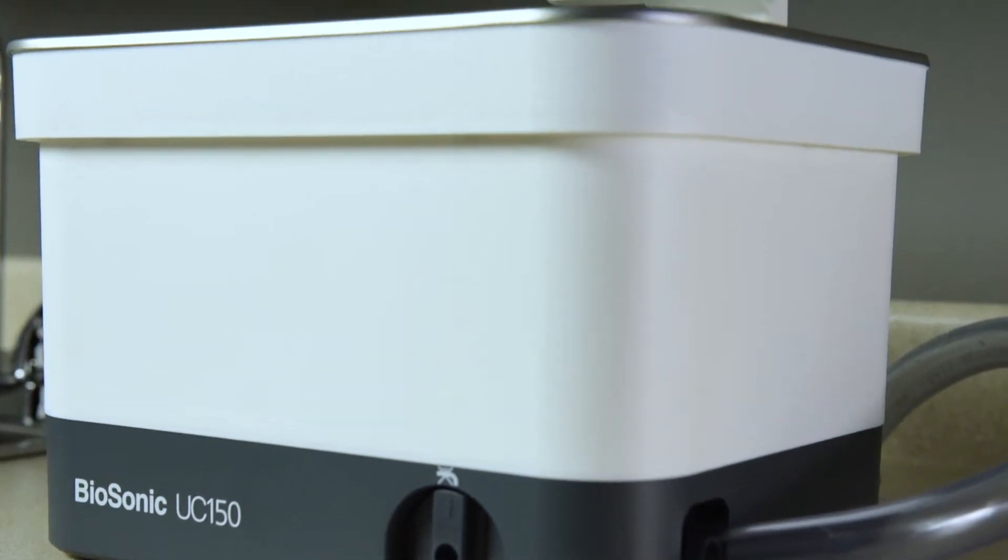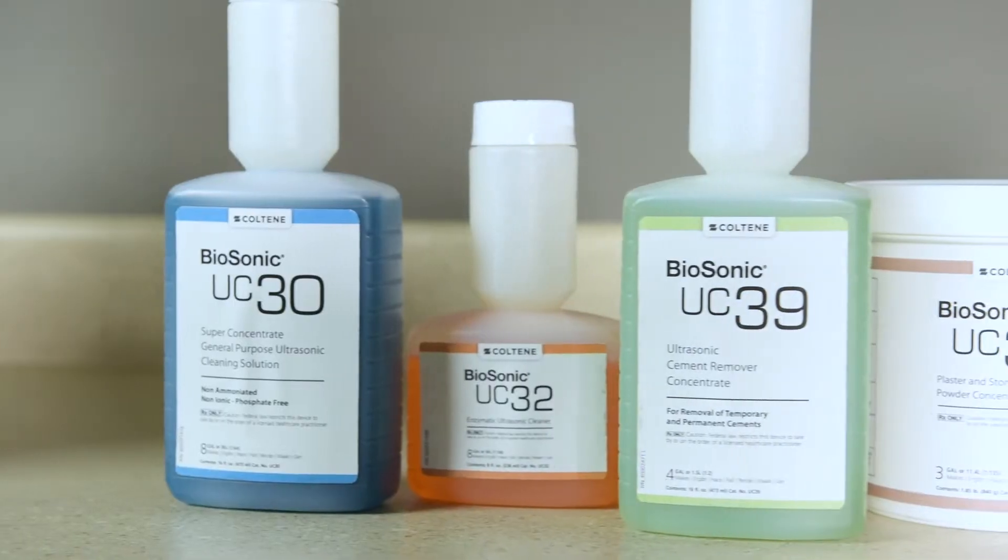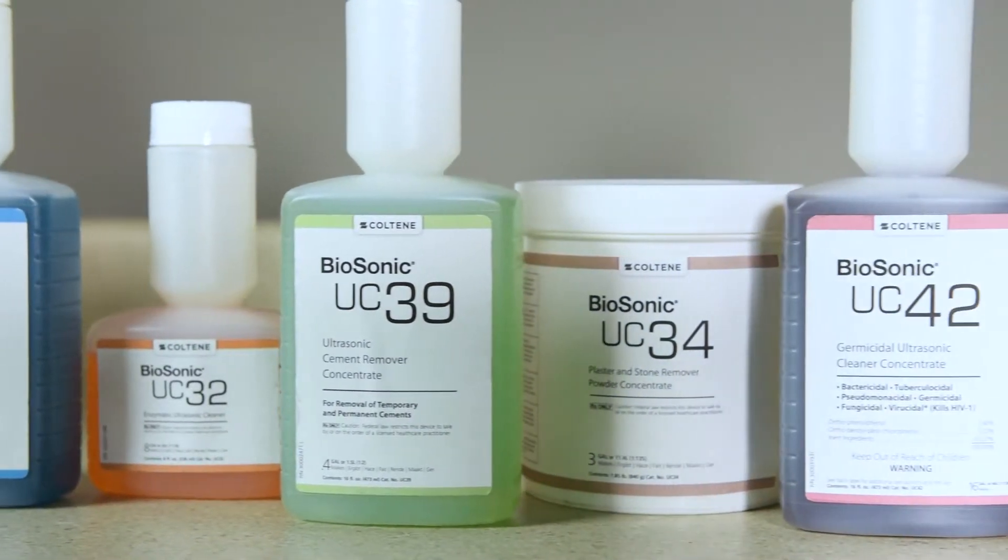To perform the foil test, you'll need your Biosonic UC150, Foil Test Kit FT1, and any Biosonic solution or other solution.